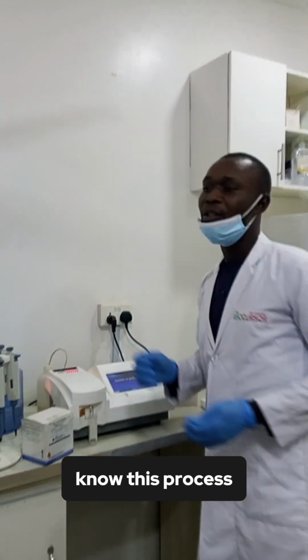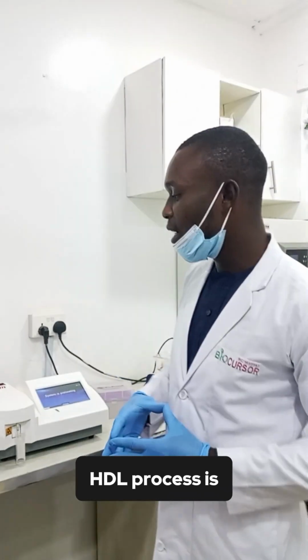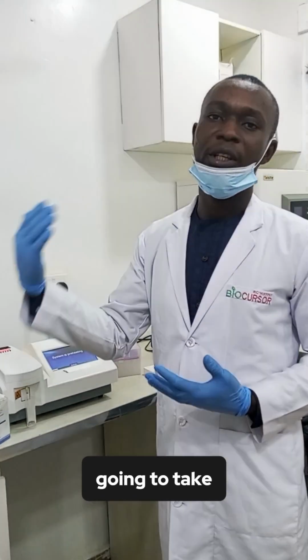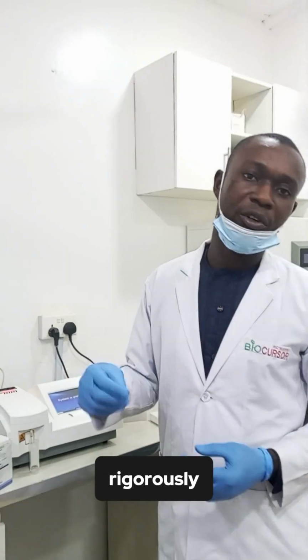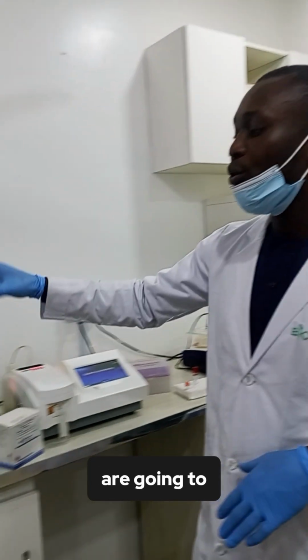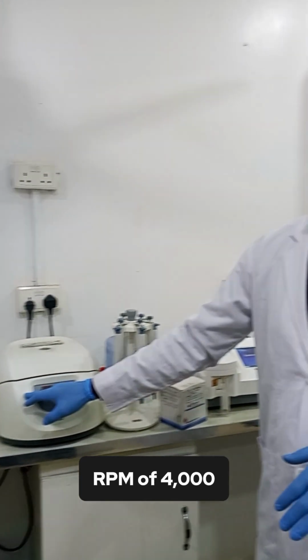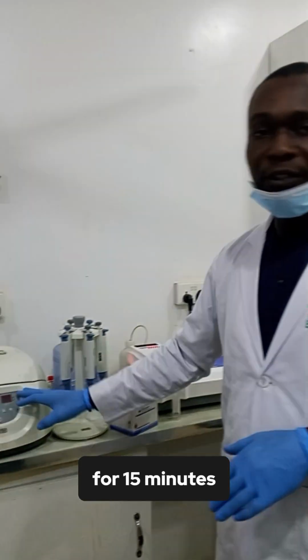As we all know, this process, HDL process, is a tedious process. We are going to do what we call precipitation of this HDL, where we are going to take an equal volume of the sample and HDL reagents. We incubate, mix rigorously and incubate for 10 minutes at room temperature. After that, we are going to use this centrifuge to centrifuge at RPM of 4000 for 15 minutes.